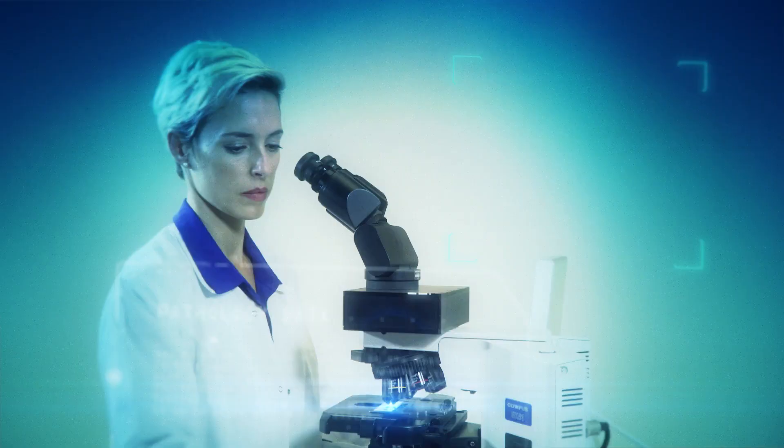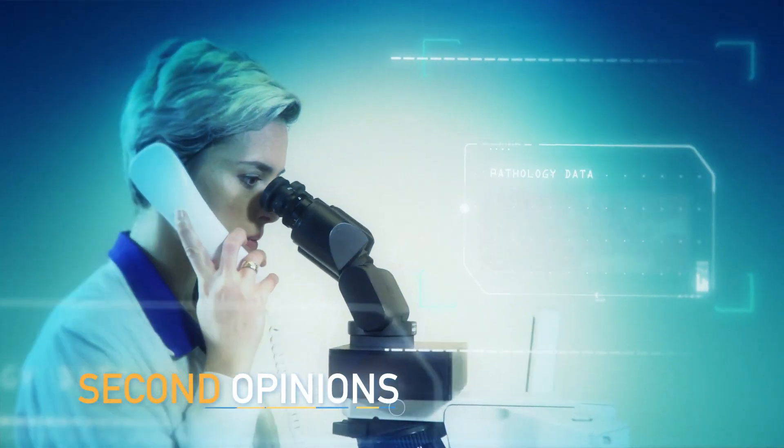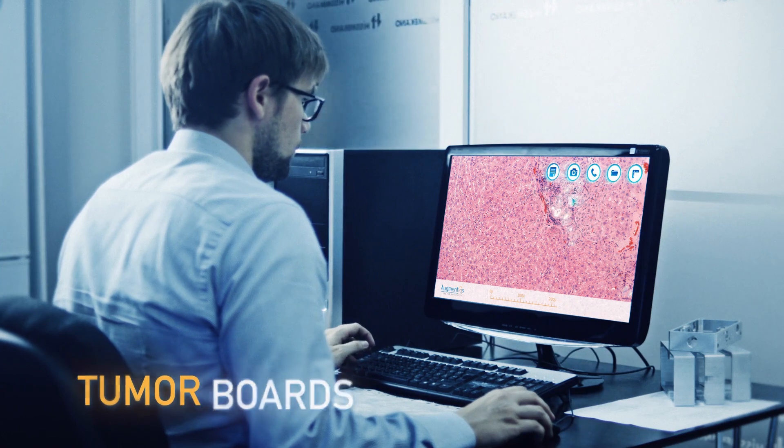With real-time communications, pathologists can now share images and collaborate with colleagues across the hall or across the globe.